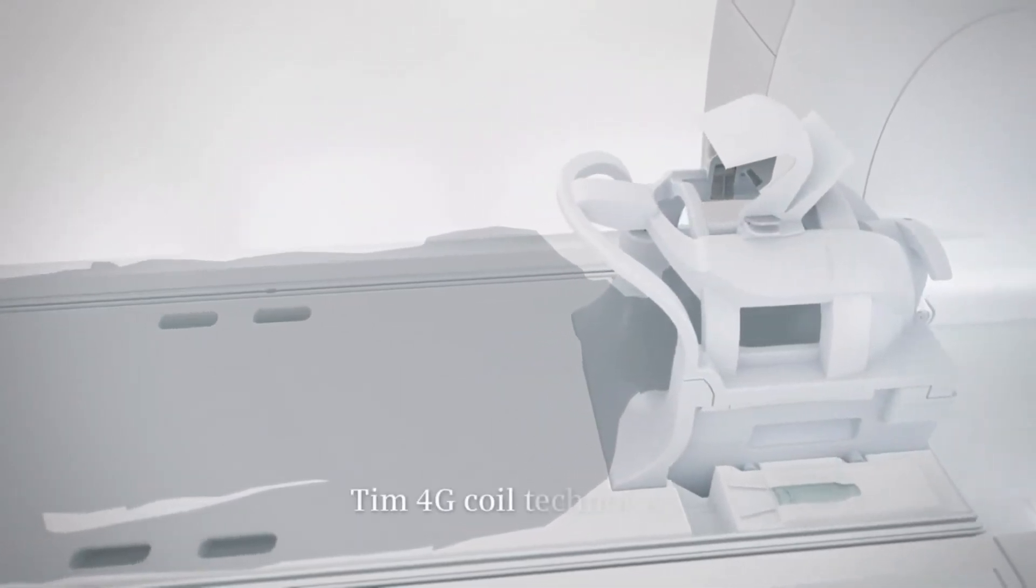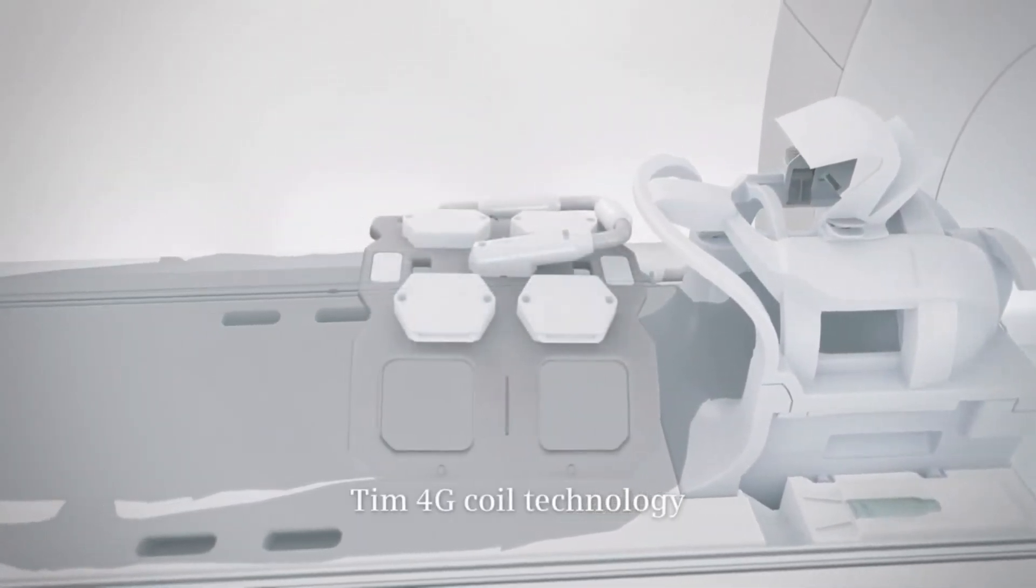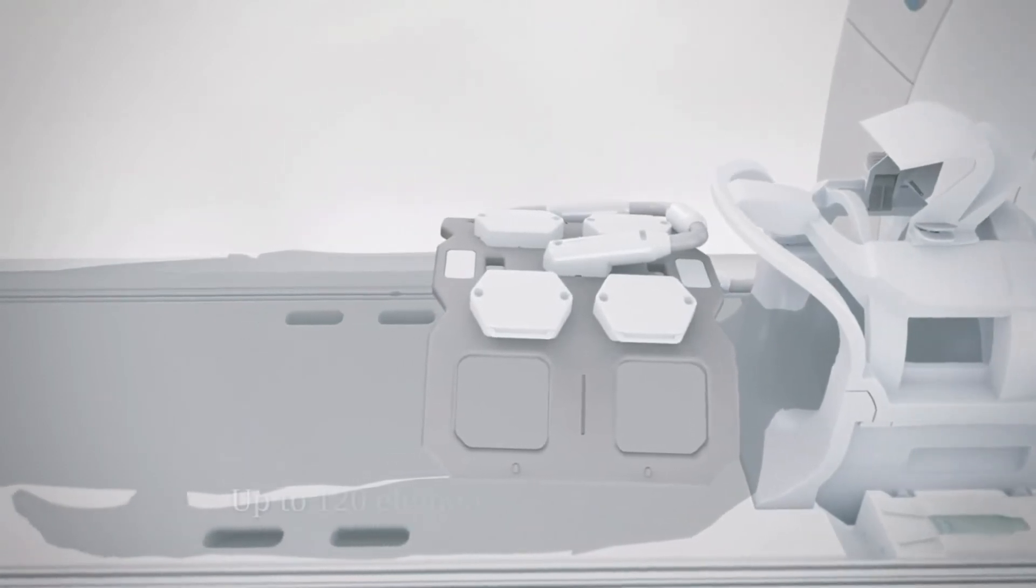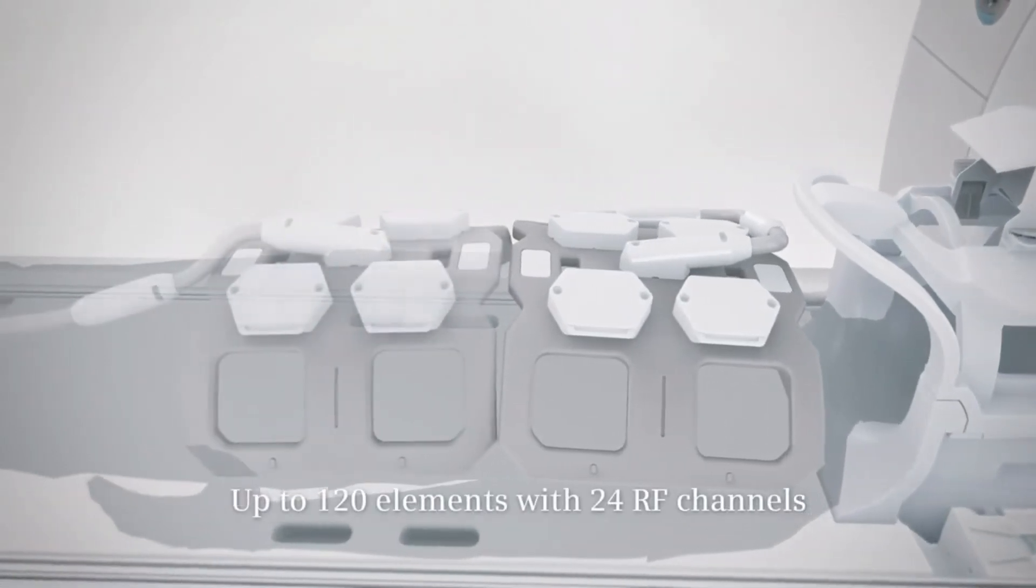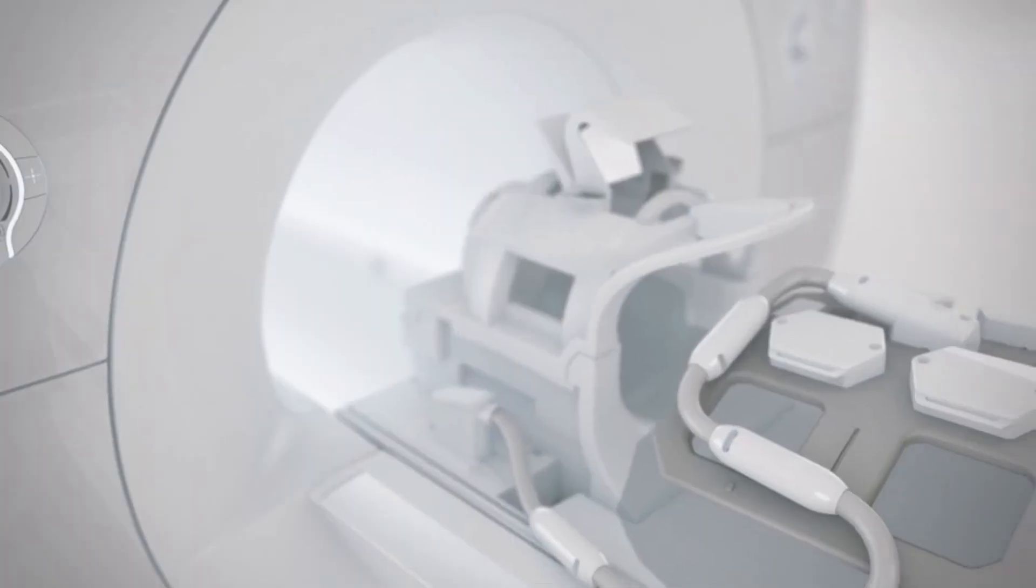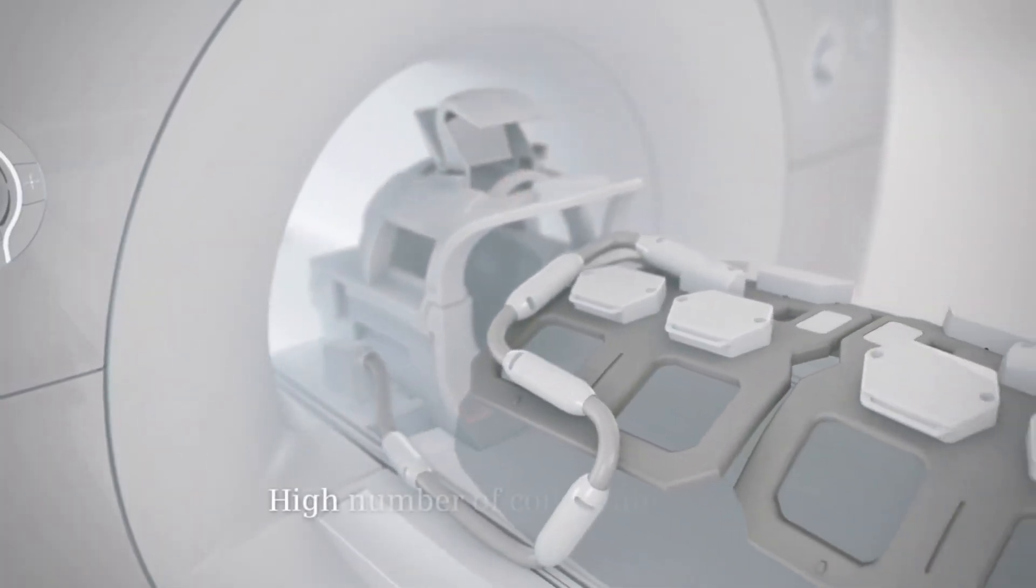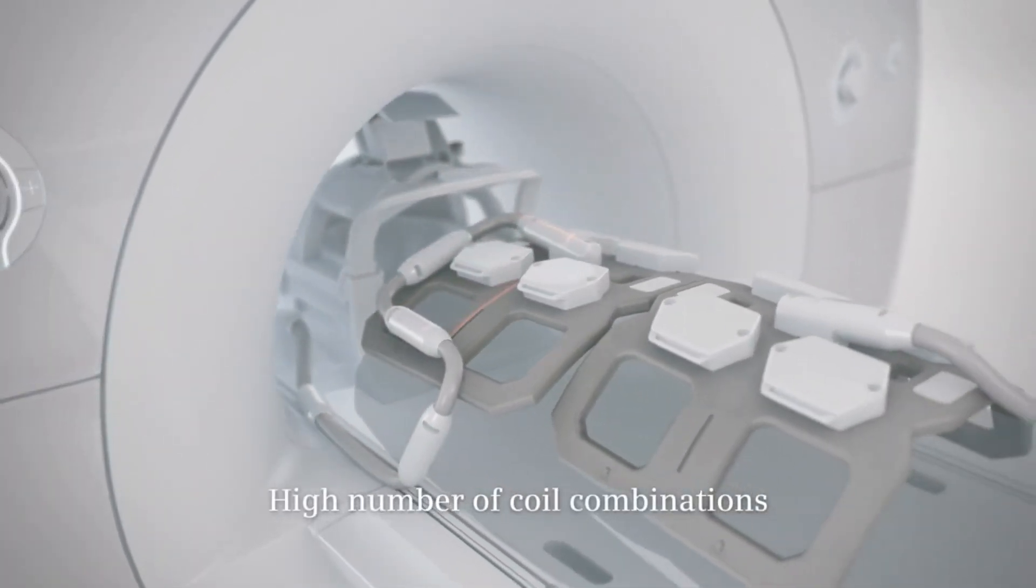A multitude of possible coil combinations increases flexibility in clinical workflows. Up to 120 elements in combination with 24 RF channels ensure unique TIM 4G image quality.